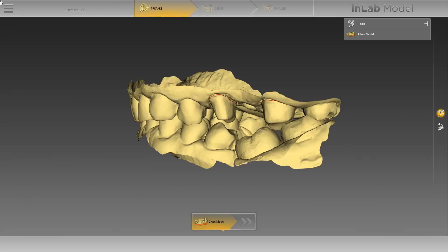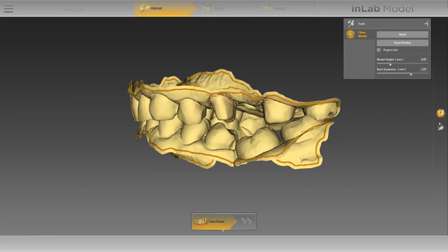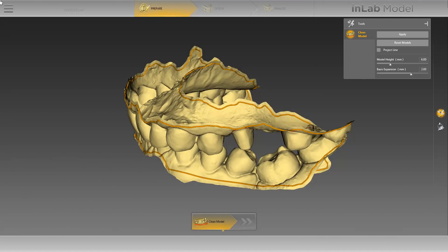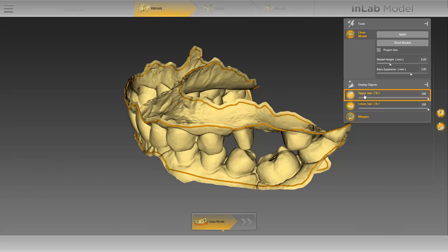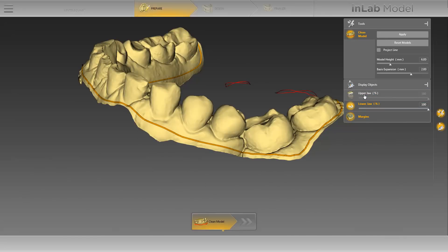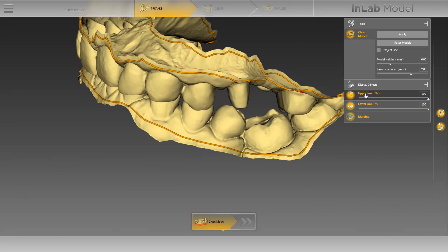We will begin in the prepare phase with the tool clean model. After activating the tool, a cut line is automatically drawn in the upper and lower jaw. This line marks the transition between the scanned model data and the future model base. Before we start cleaning the model, we will open the function display objects in the page palette and deactivate the upper jaw. The procedure for correcting the cut line is similar to the procedure for adjusting the margin line. You start by double clicking on the line, then single click until you reach the point where you want to reconnect with the existing line or end the correction. To finish the correction, double click again. In our case, we have already corrected the cut line of the lower jaw, so we will switch to the upper jaw and then deactivate the lower jaw.